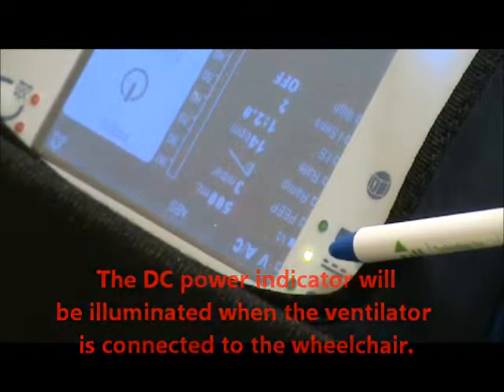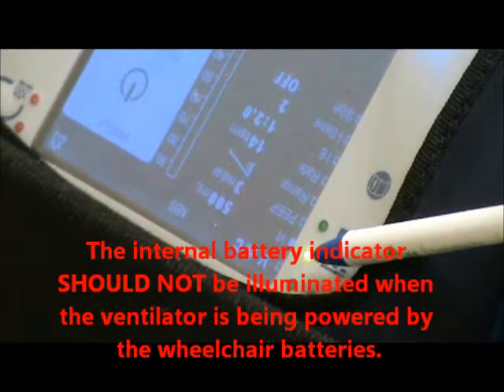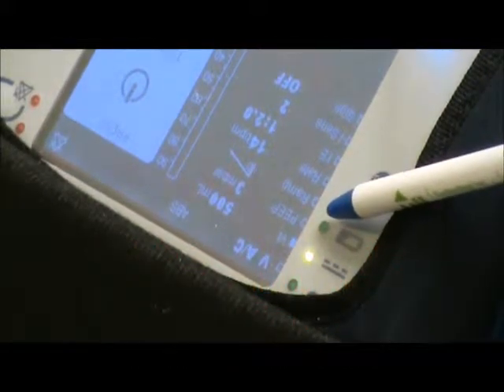When the DC light is not lit up, you might want to check whether the machine is working from internal battery — otherwise the machine will just shut off.